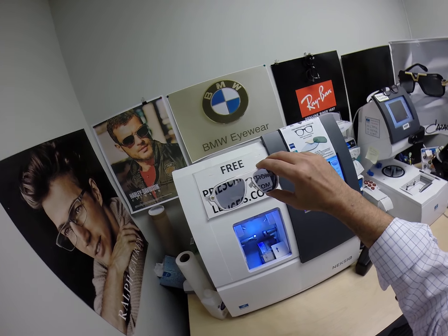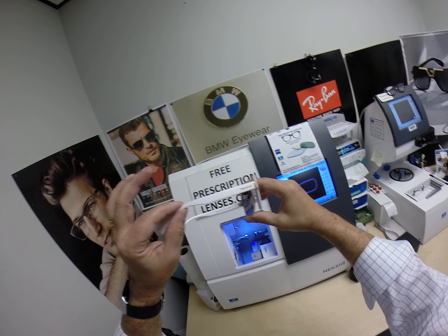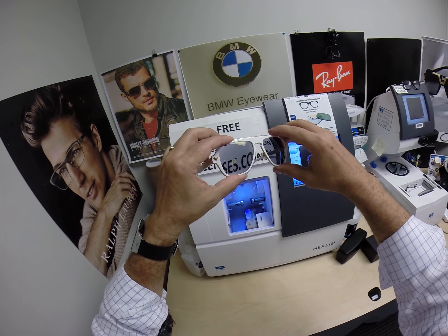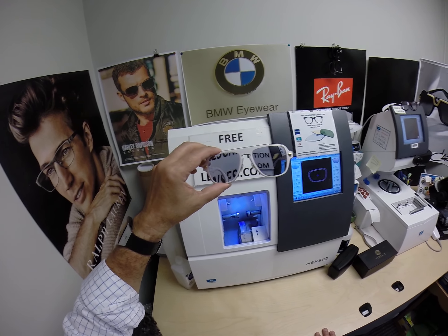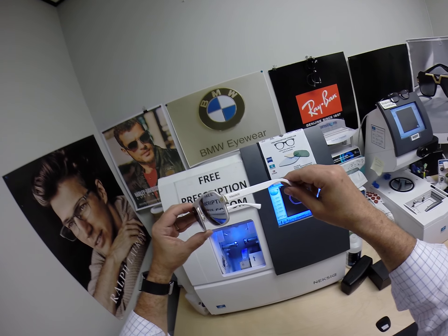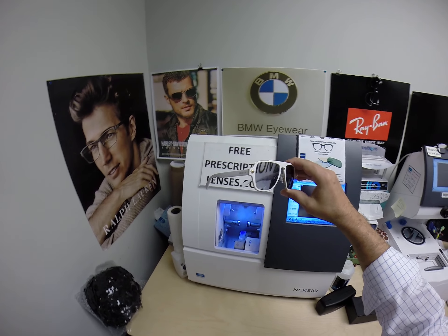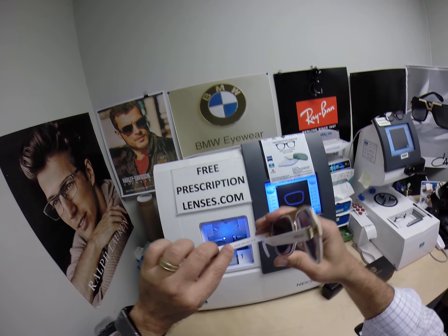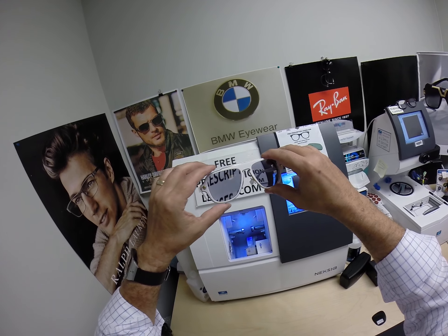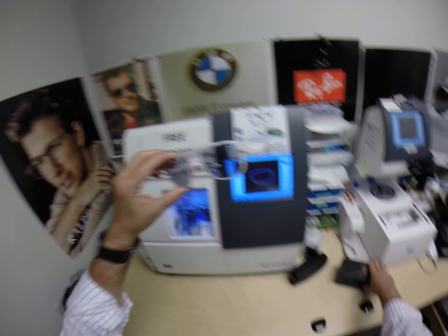So it's remarkable what Javier is able to do, and he's going to look just great doing it now with his Versace 2199 and his Zeiss Photofusion extra gray lenses with the gold flash mirror. He's just about to leave for vacation, so I'm going to do some expedited shipping to get these to him so he can look good and feel good while he's rocking these things on vacation. So again, Javier in Des Moines, Washington — thank you so much for the purchase of the Versace 2199 color 1002, in the 56 eye size, with your Zeiss Photofusion extra gray lenses with the gold flash mirror.